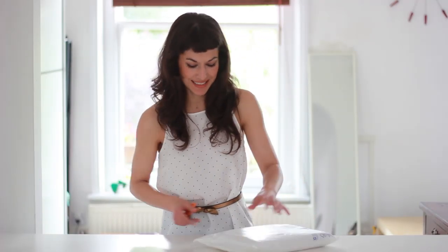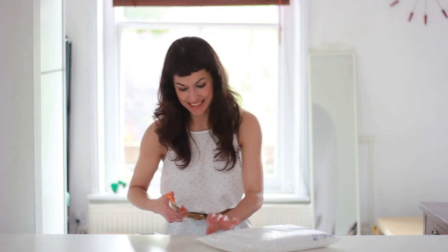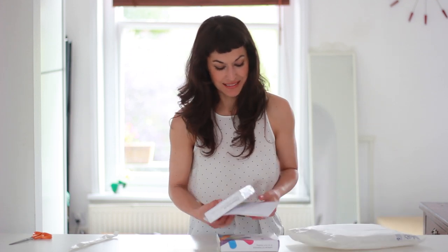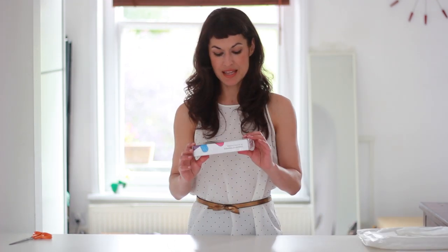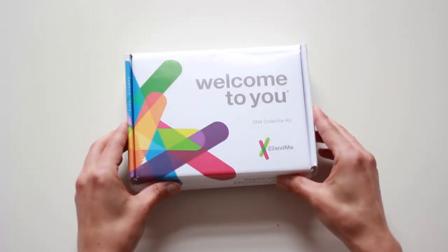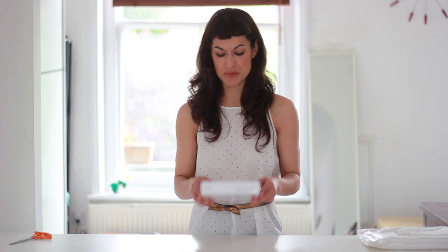You need a pair of scissors obviously. I ordered two, why not? This is actually an amazing gift for anyone. It's the 23andMe DNA kit. I'm very, very curious about it.